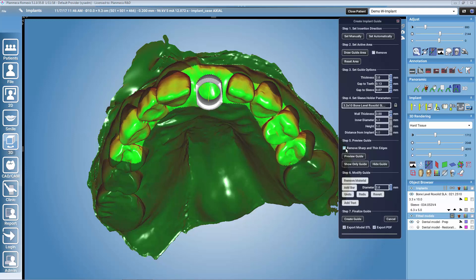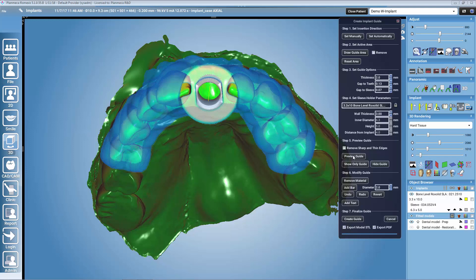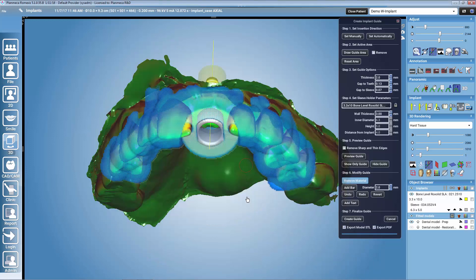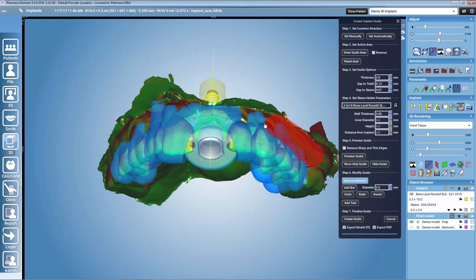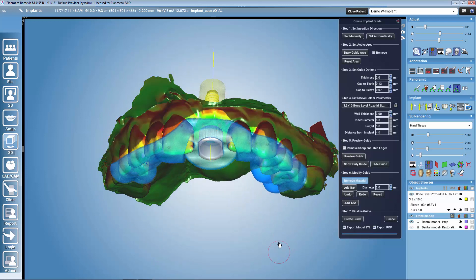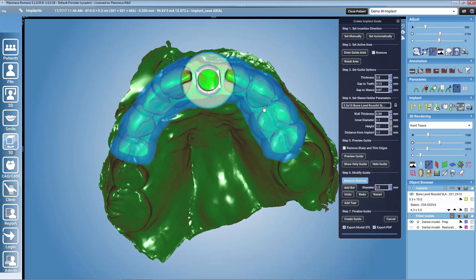In step five, we have the possibility to select to remove sharp and thin edges. This should always be selected when doing real patient cases. After that, we can create a preview of the guide. Romexis will calculate a preview which we can then still modify. For example, we can remove material, or remove any unnecessary parts from the guide.